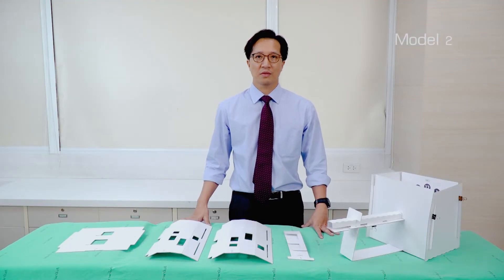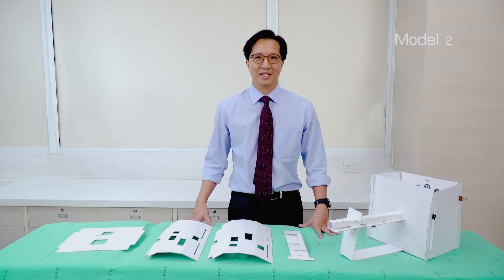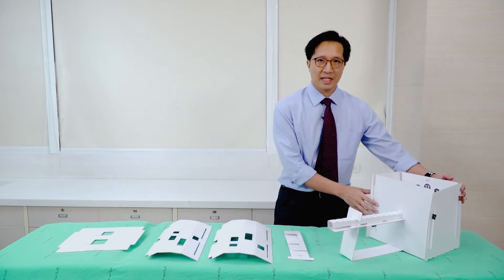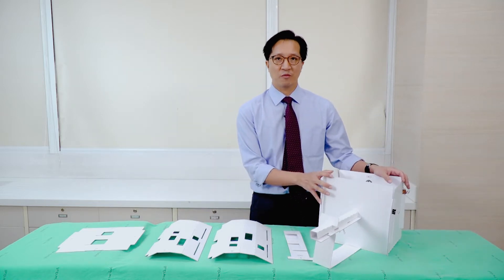So how to build model 2, the esophageal varics trainer. What you need is model 1, because we're using the same frame.